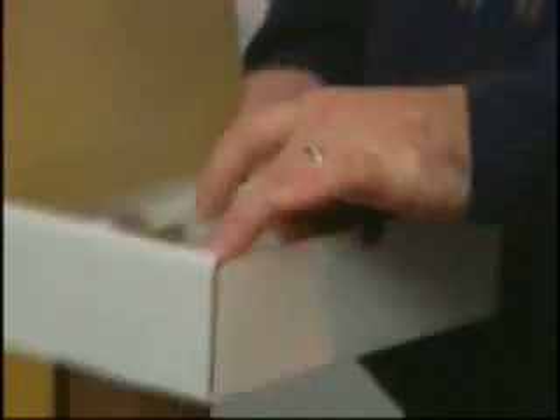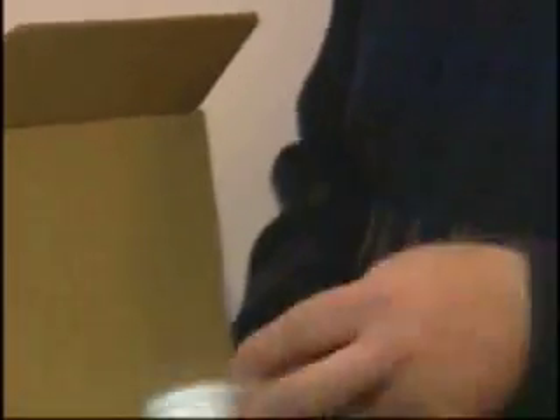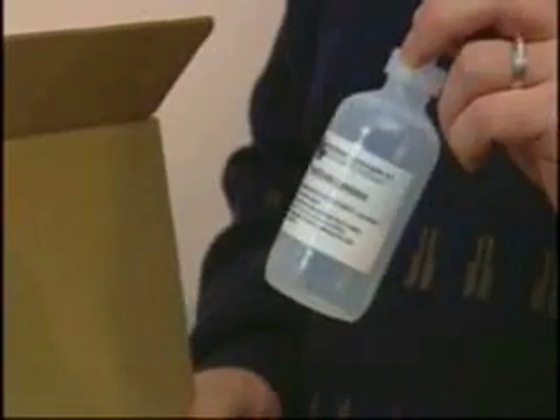In addition, you'll receive the headband and the cross strip, which we'll be demonstrating how to use. You'll receive three flex-trodes in their own container, a plastic cup used to store them and to keep them wet, and a container to hold the flex-trodes solution for easy use.